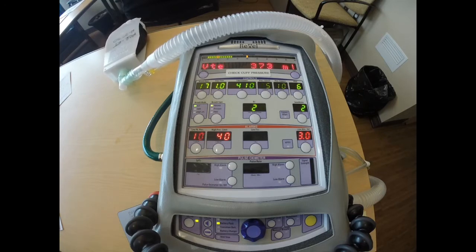So how does pressure-regulated volume control work? We're going to take that 3-breath sequence as an example. As the breath advances from breath 1 to breath 3, the pressure is automatically increased to achieve the set tidal volume. Ventilators give a test breath with a pause.